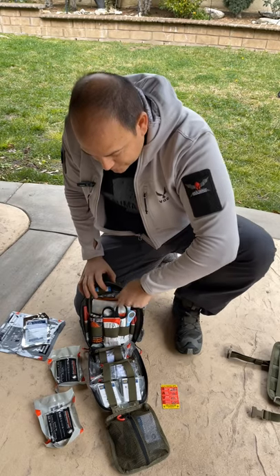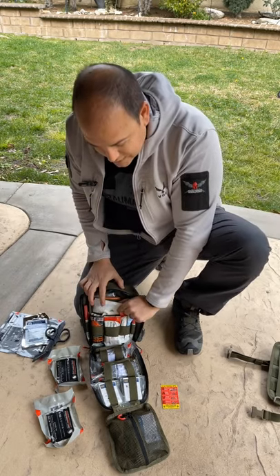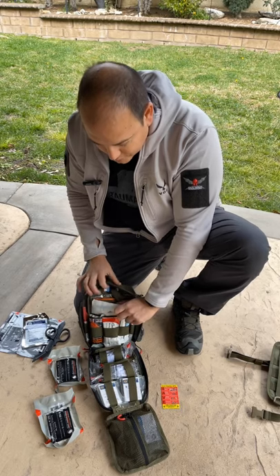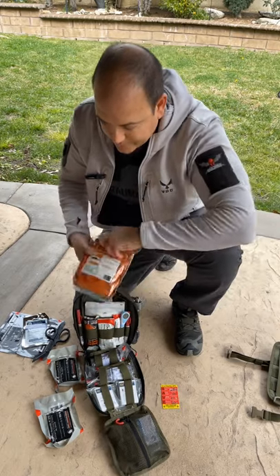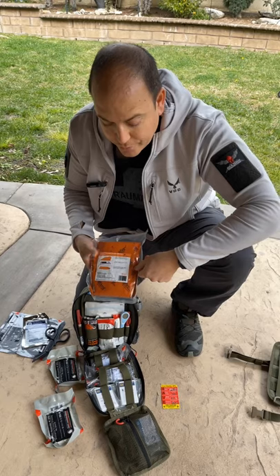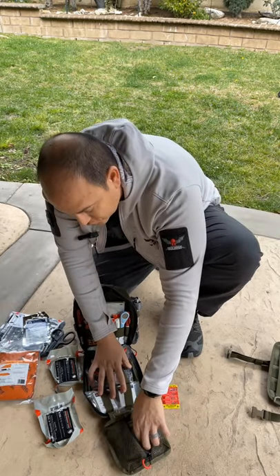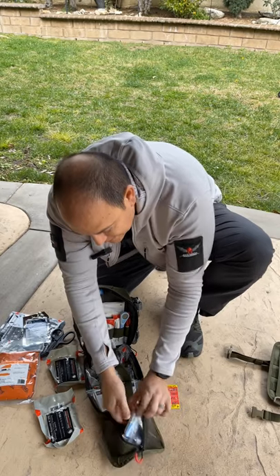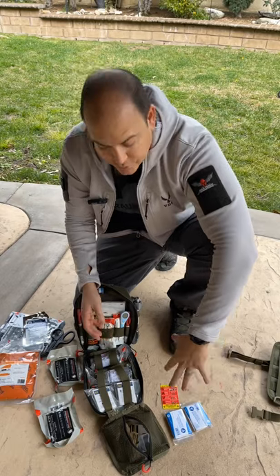We have larger trauma shears, some basic gauze for minor cuts and abrasions, and a Blizzard blanket. The Blizzard blanket is specifically for controlling hypothermia. The bag also includes regular mylar blankets, which can buy you time until you apply the Blizzard blanket or if you have multiple casualties.